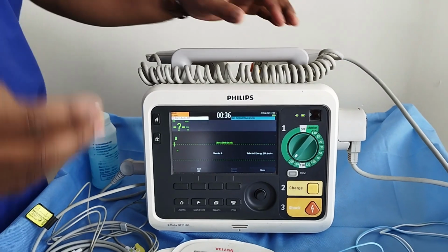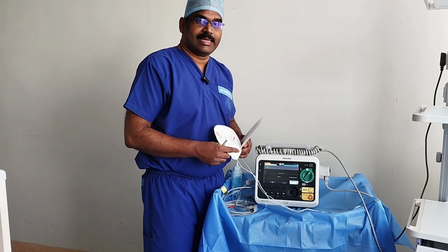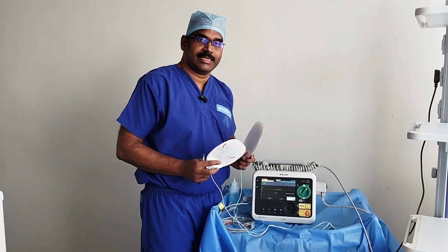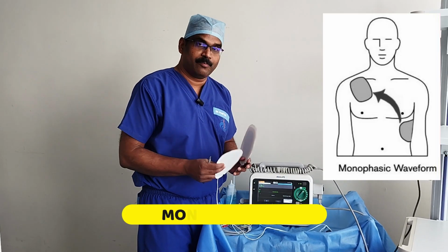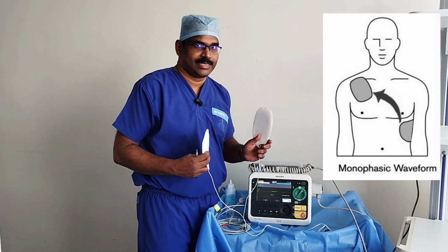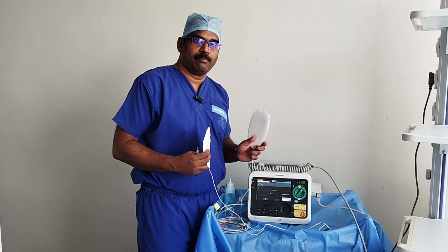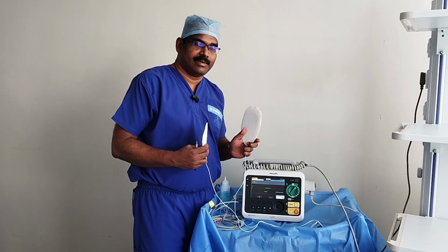Now coming to what is biphasic and monophasic. Monophasic defibrillators actually discharge the electrical current for defibrillation from one pad to the other in one direction only. But newer defibrillators have biphasic defibrillation.